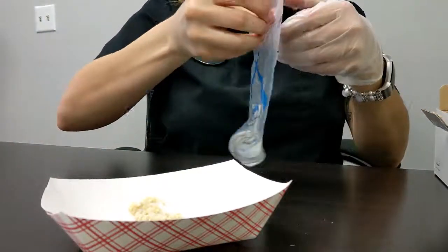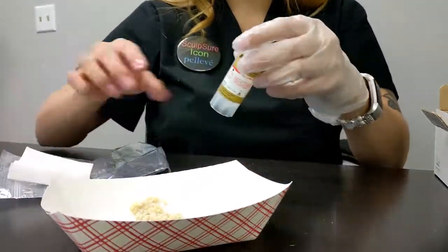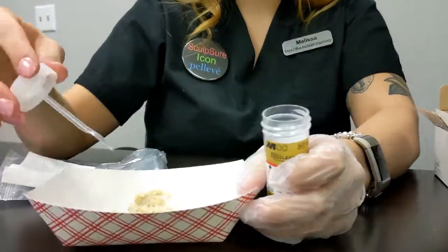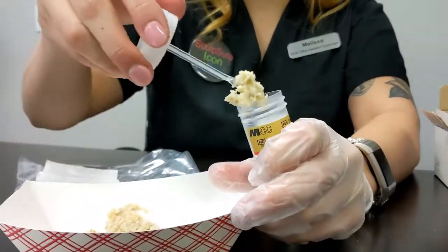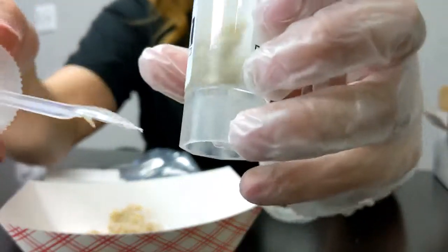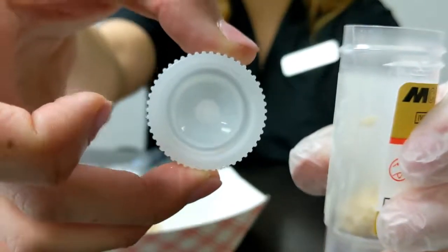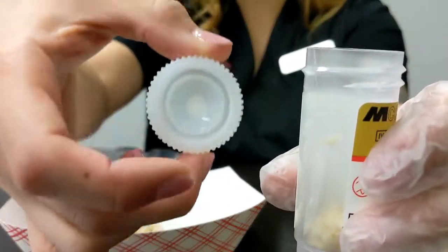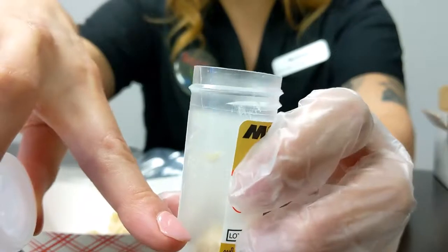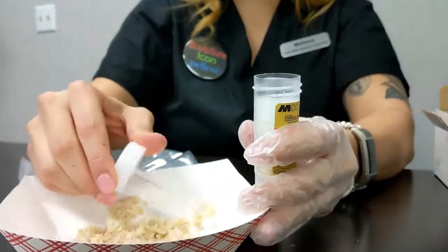The other tube needs to be collected at the same time, so keep your glove on. Unscrew that cap there, and you can scoop into here. So you'll notice with this one that there is no fluid in there, there's no preservative, and that is because the white capped vials need to be frozen. They don't have preservative because they will be frozen. So you will need more specimen. You need to fill it up to that same fill line, but this is all stool specimens, so keep scooping until you get there.